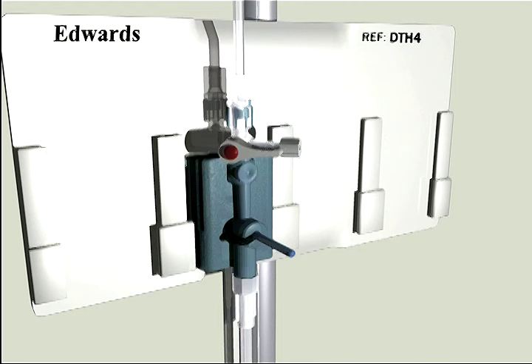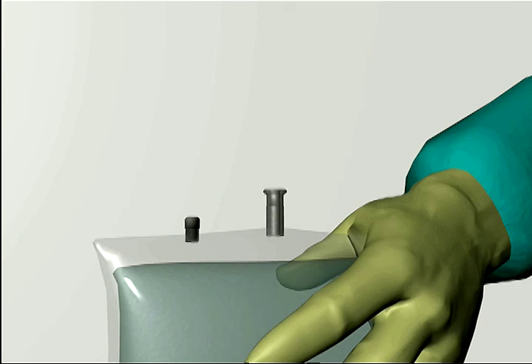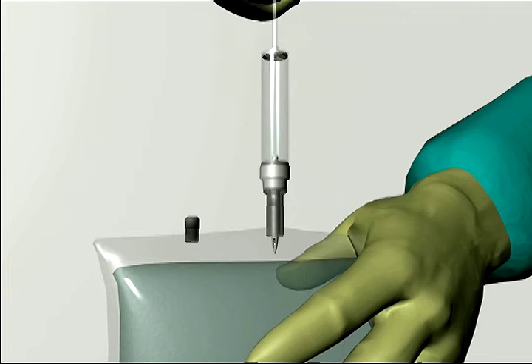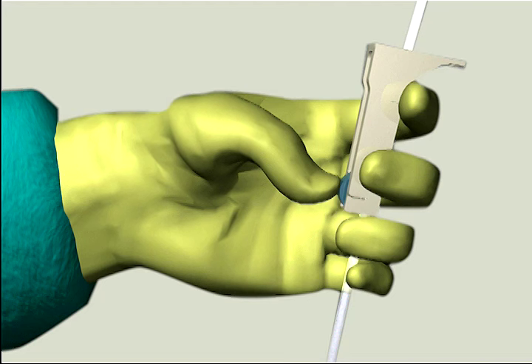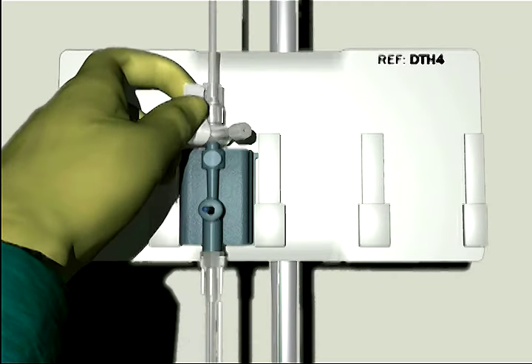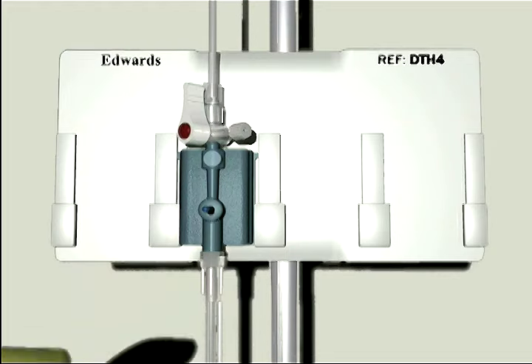Step 3: de-air the IV bag and prime the TruWave system. Invert the normal saline IV bag so air raises to the base of the bag. Anticoagulation per institutional policy. Spike the IV bag with a fluid administration set, keeping the drip chamber upright. Open the roller clamp on the IV set. Open the vent port by turning the stopcock toward the patient's pressure tubing and away from the transducer, while leaving the vented cap in place.